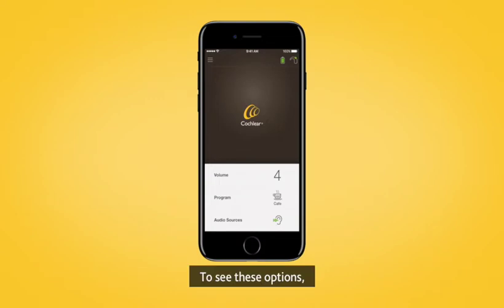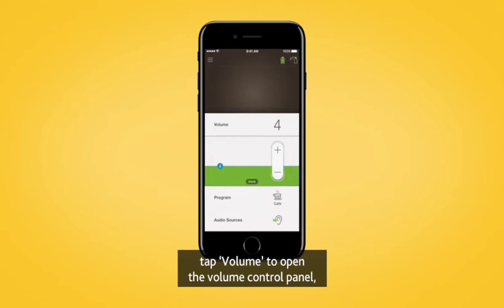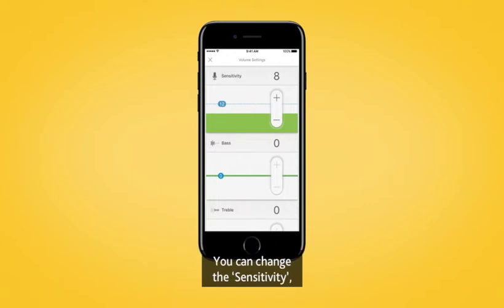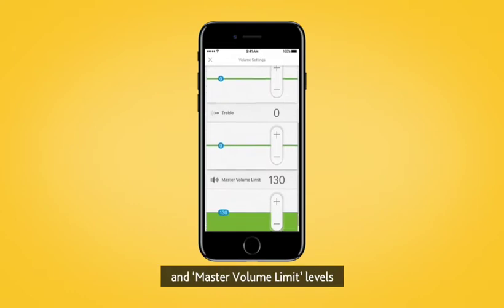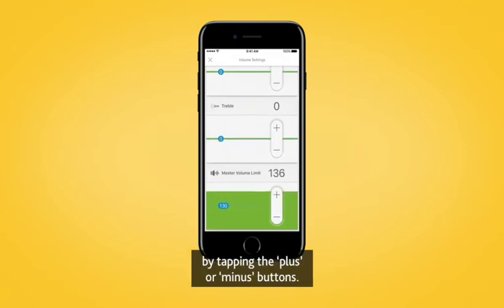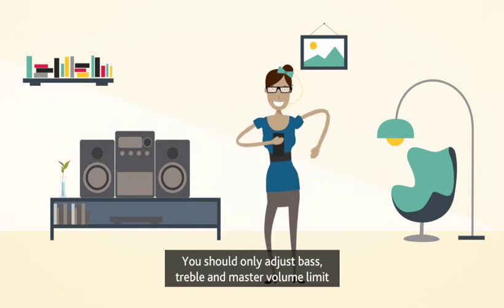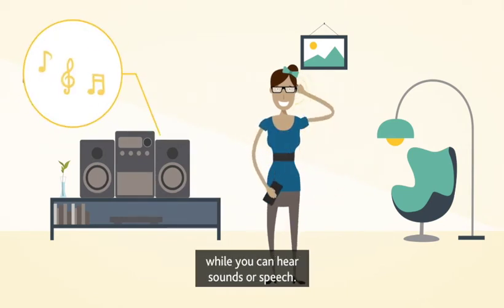To see these options, tap Volume to open the volume control panel, then tap More to open volume settings. You can change the sensitivity, bass, treble, and master volume limit levels by tapping the plus or minus buttons. You should only adjust bass, treble, and master volume limit while you can hear sounds or speech.